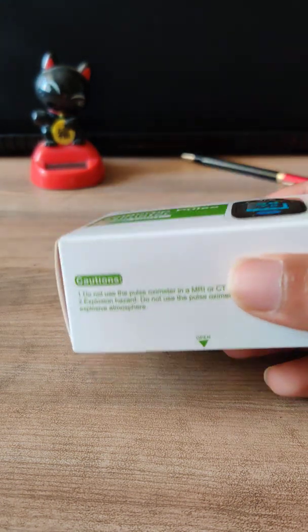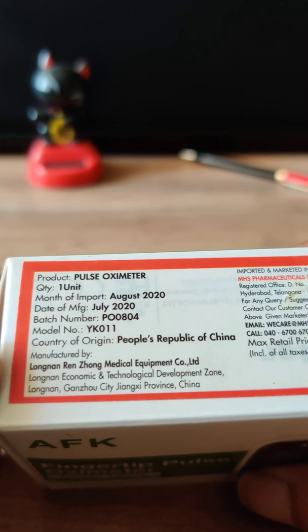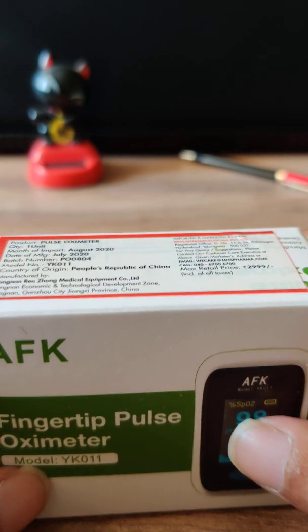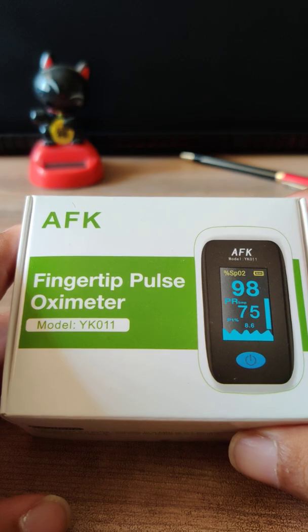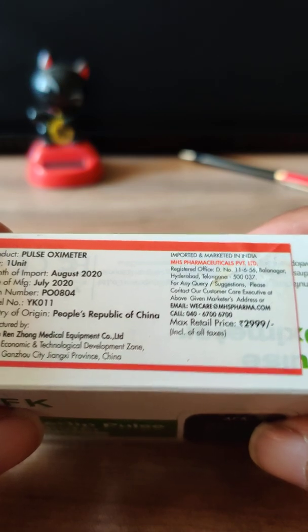This pulse oximeter is a relatively cheaper device available in all e-carts as well as medical stores. But if you see the cost listed here, it says around 3000 rupees — this is totally a false price. Usually people make a lot of money using these devices. An average device would cost around 300 to 400 rupees, and when you go to e-retailers you can get it for around 600 to 700 rupees at max.